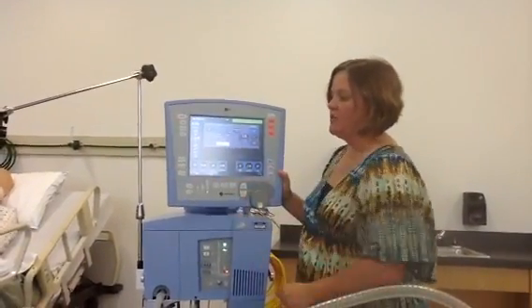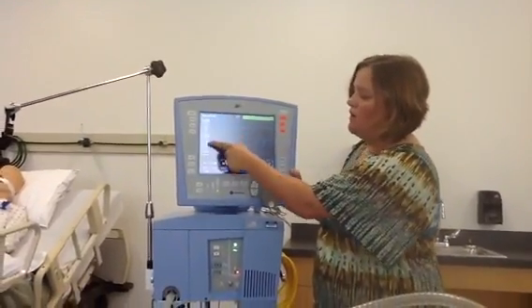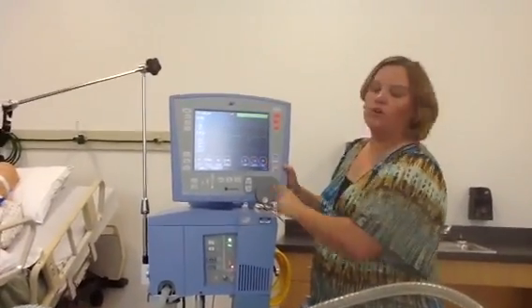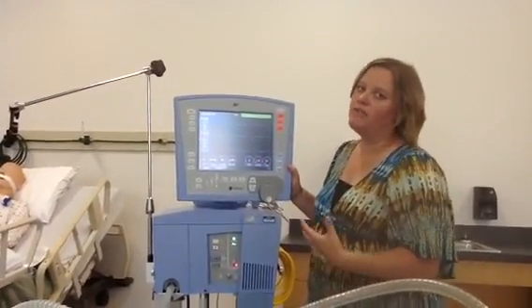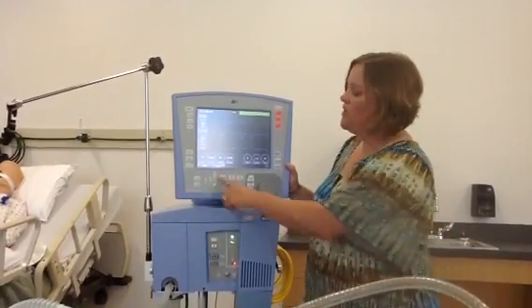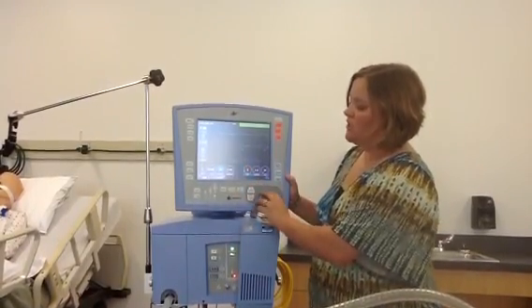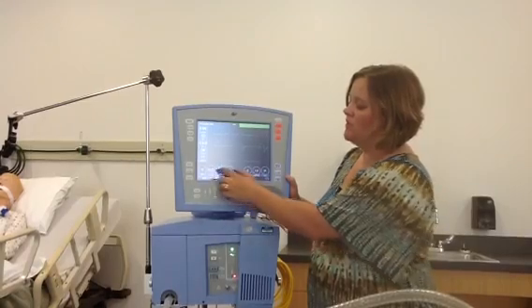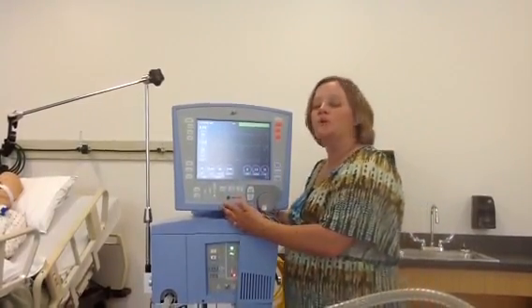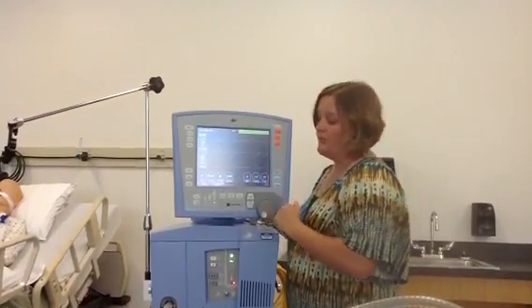So we've made it down this side of the screen. These knobs over here you are able to touch and turn. Everything down here are all your settings for your patient, so anytime you're wondering what your tidal volume or flow is, you can look here at the bottom and touch, turn, and change any of the ventilator settings. If you have the ventilator hooked up to a computer, you also have the ability to print information — either the screen information or your trend information.